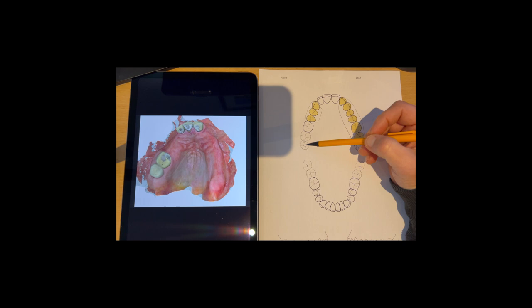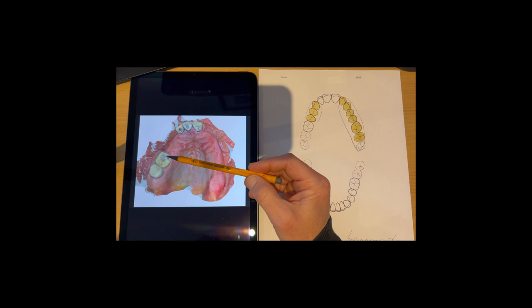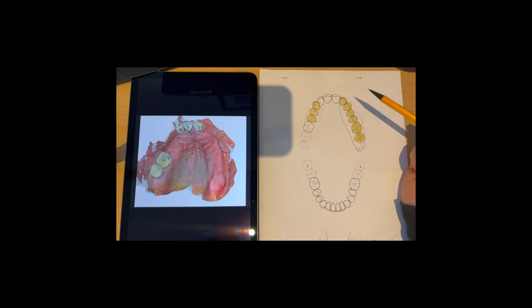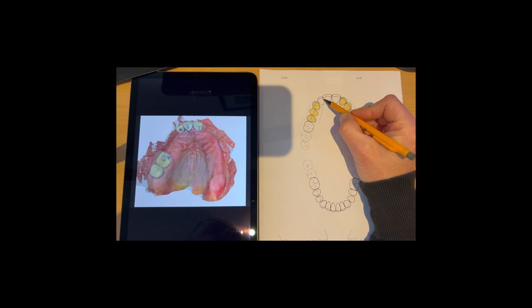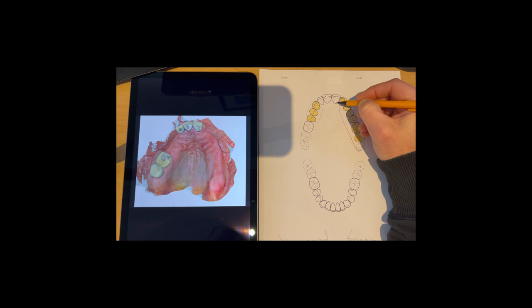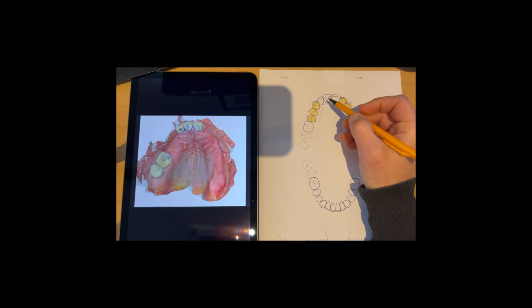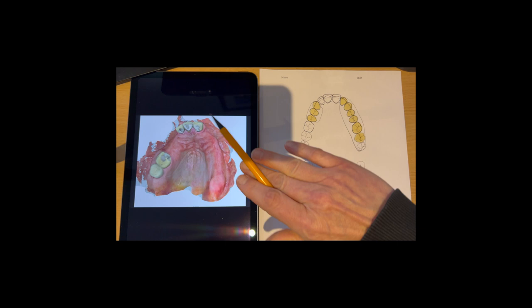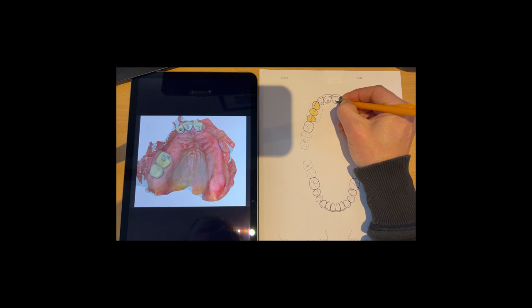Now, in terms of support, what am I going to do? I'm going to use these two teeth here as support. Looks like there's something going on there on that crown, maybe a little bit of a chip or something, but this can all be covered and used for the partial denture support area. So I'm going to just bring that over there like this. Nice support areas there. And then these have got crowns on there, so a little bit of smoothing of these areas just to create flat ledges over which the denture can be supported.